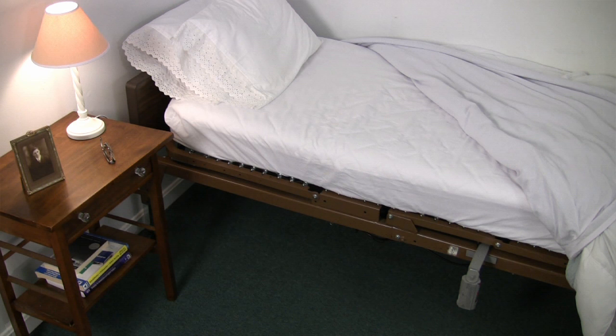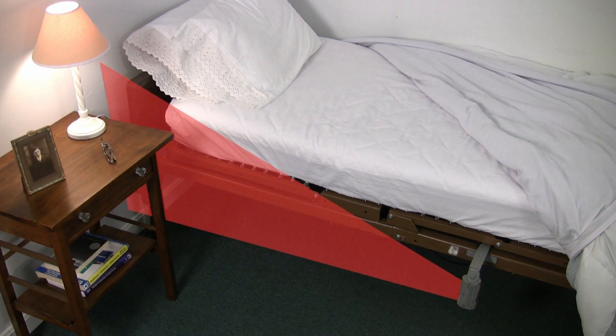Ideally face the alarm at the top of the foot of the bed so the sensor field stops at the wall and does not trigger a false alarm if someone walks past the foot of the bed.